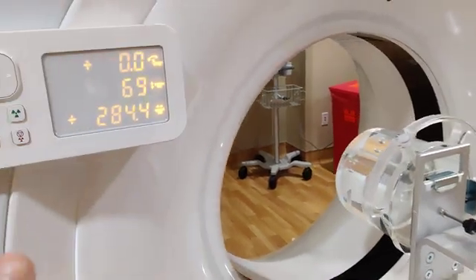So then we're ready to start. Yeah, it's going to check it, and if there's something wrong it'll give you an error message. This is what happened to us yesterday - it said it was off center and told us to move it in 0.5 millimeters to the left, remember? And so that's what we did and we were fine.